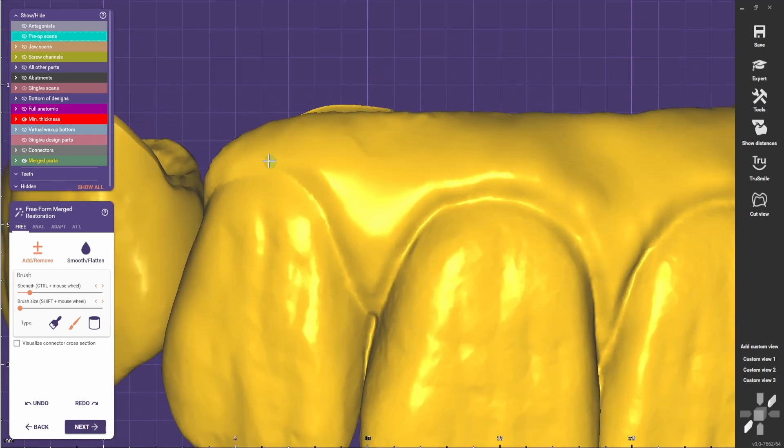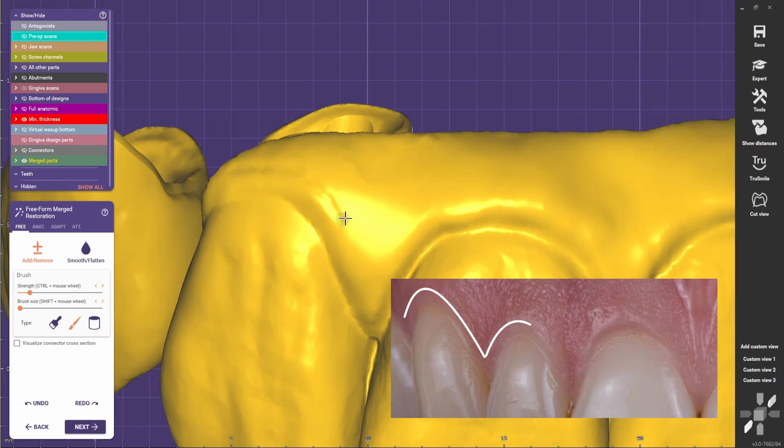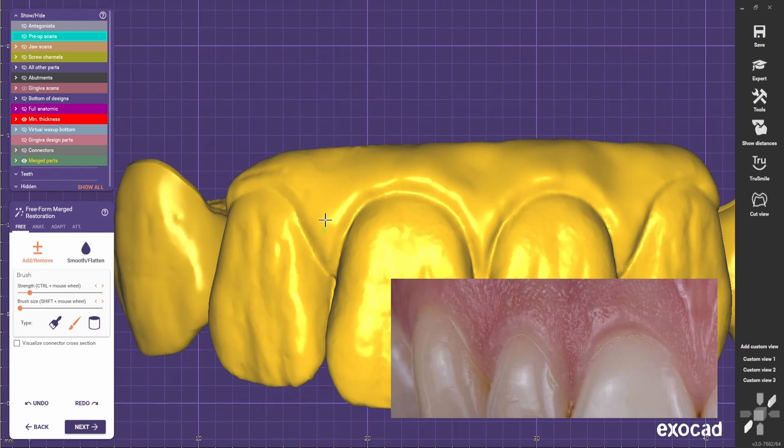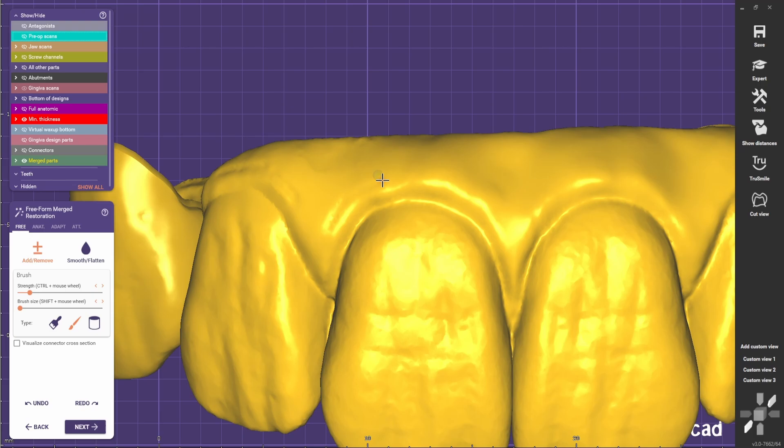So now we're going to create a small transition part that usually can be seen on healthy gums. Usually it's an area where it's very smooth, it's the marginal gingiva.